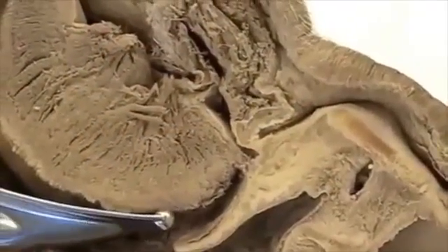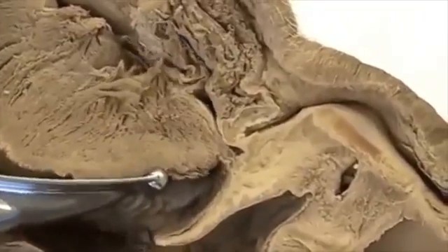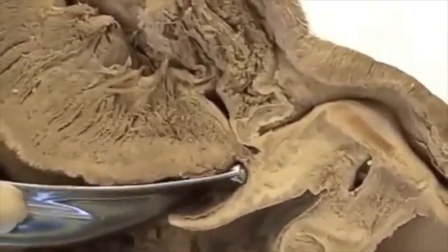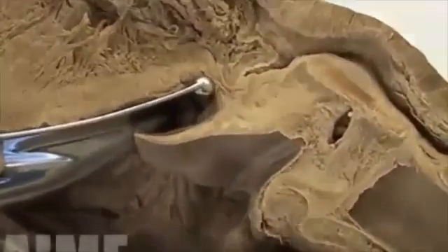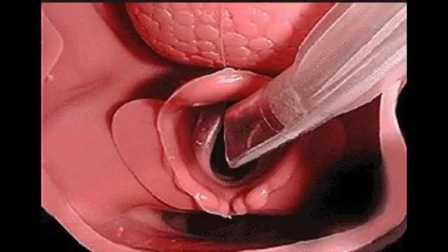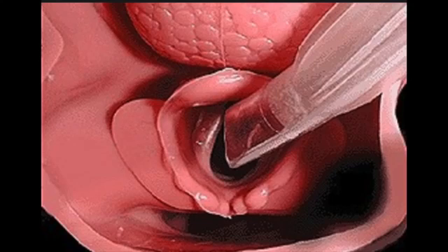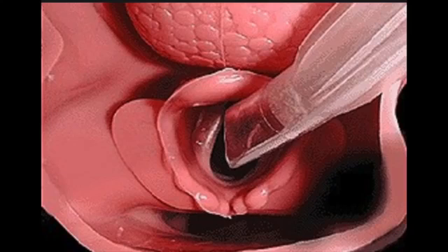Take a look at this Macintosh blade being inserted improperly and not in the vallecular — the epiglottis does not move. However, when placed in the vallecular, the epiglottis moves out of the way. As you can see in this picture, the tongue and vallecular lay anterior to the vocal cords, which lay anterior to the esophagus.